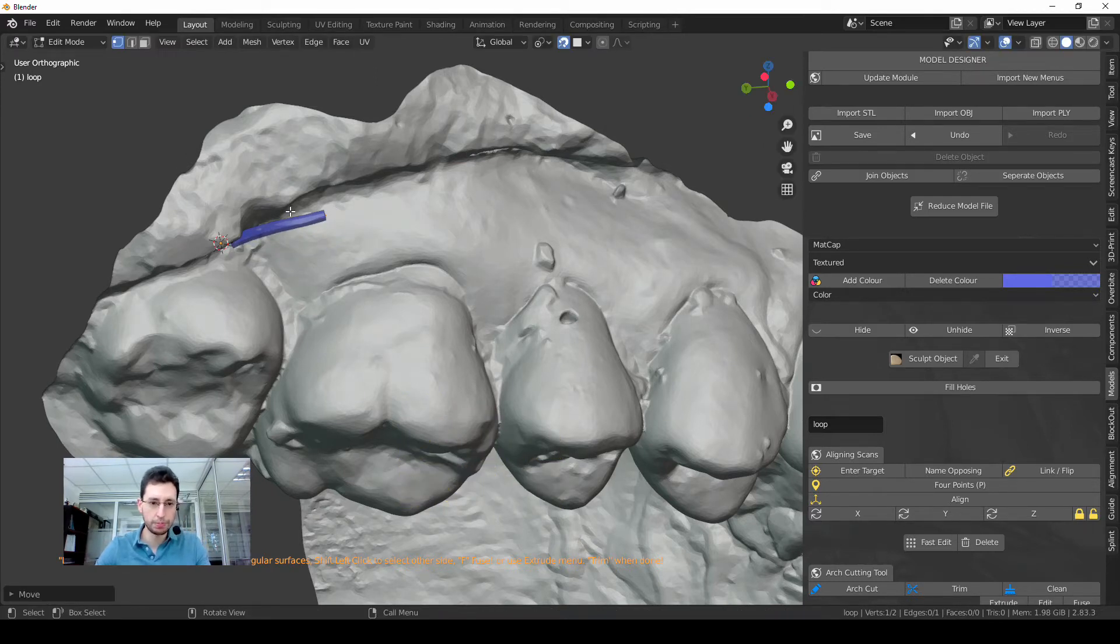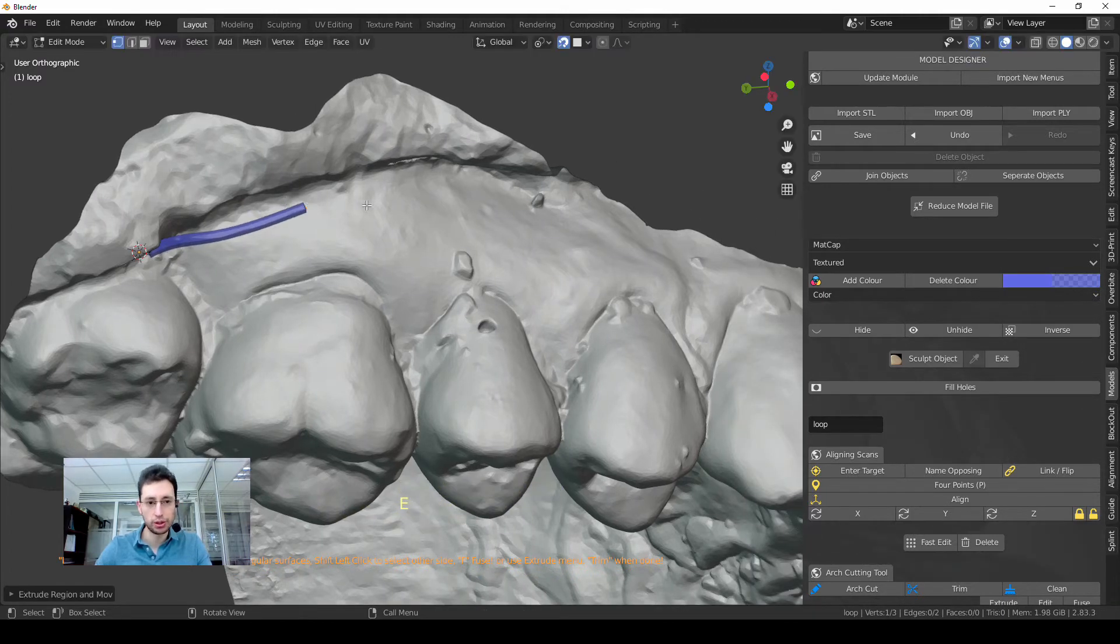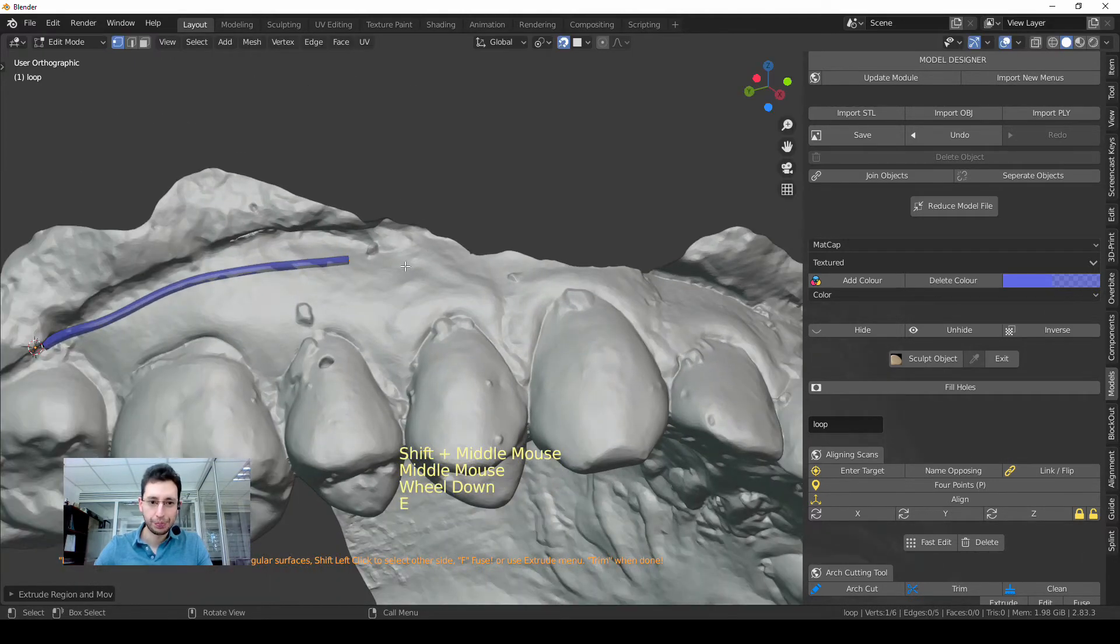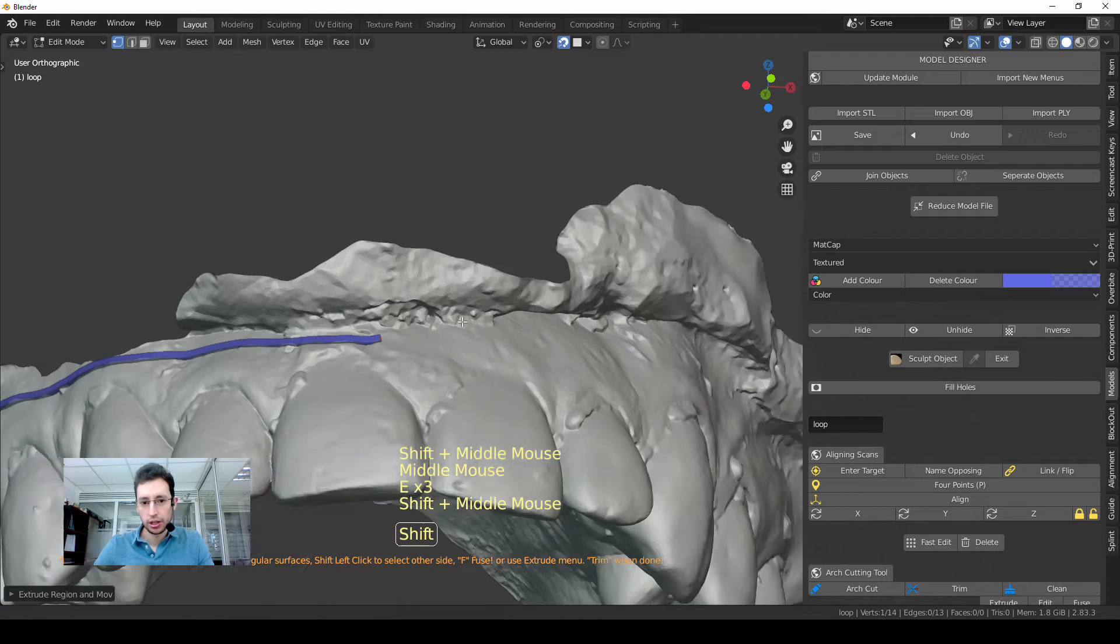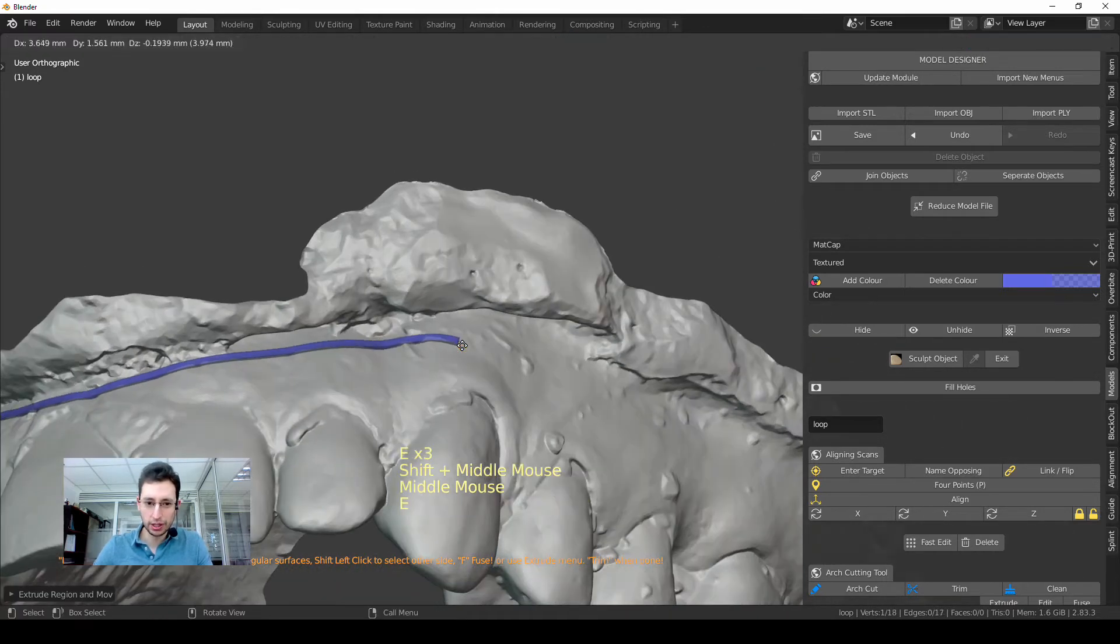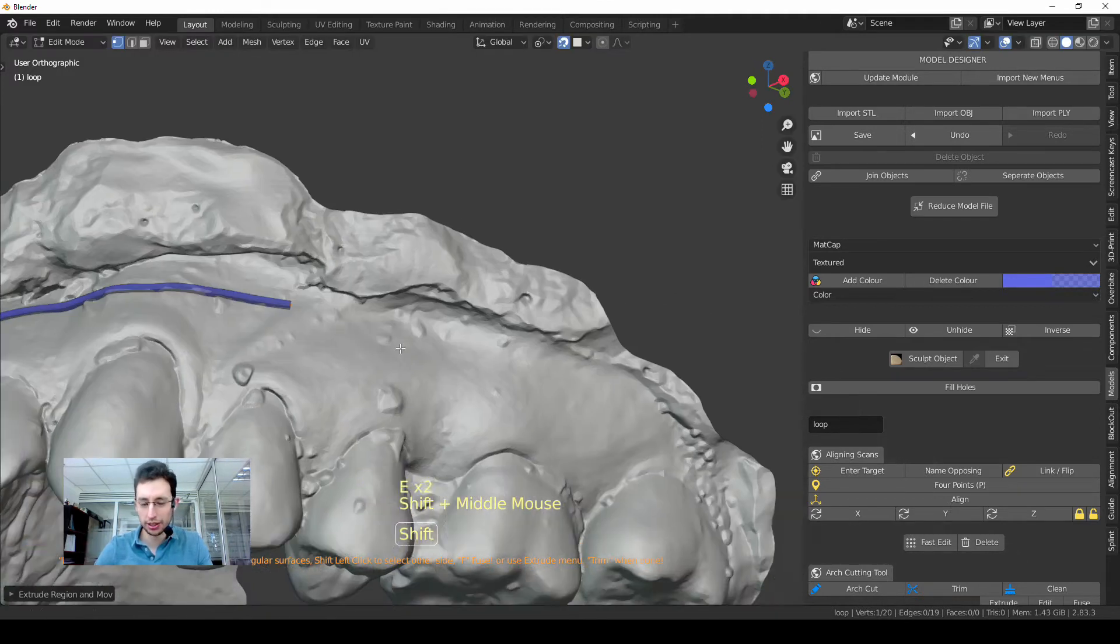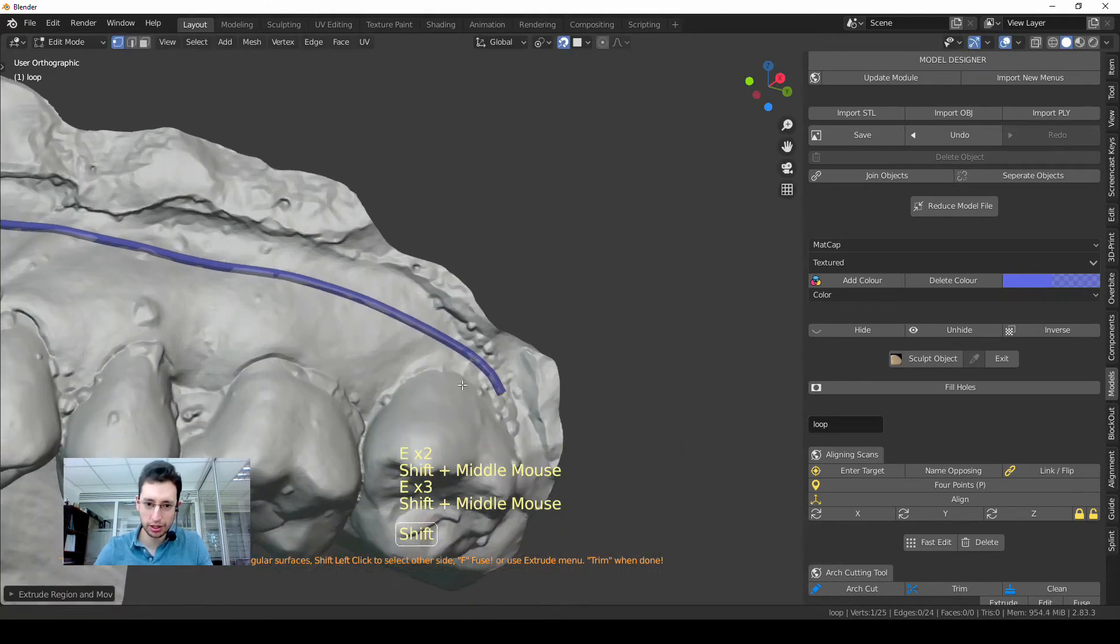I will move this tube using the key G, and then I will press E for extrude. Extrude is creating more geometry. I will move along the model working my way, being careful to just remove the parts I don't want and being careful to not go through the model. I will show that in a second, right here in this corner, in this back molar.